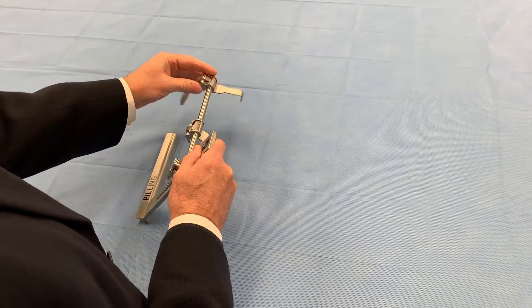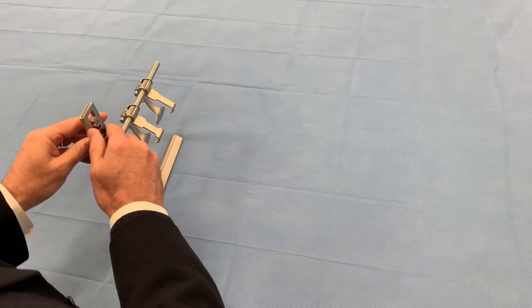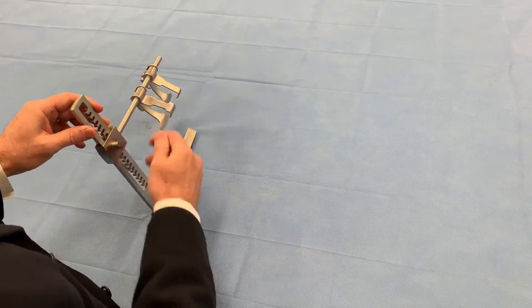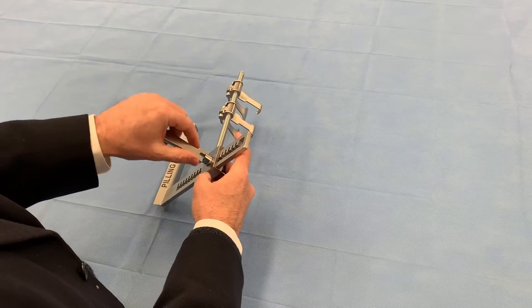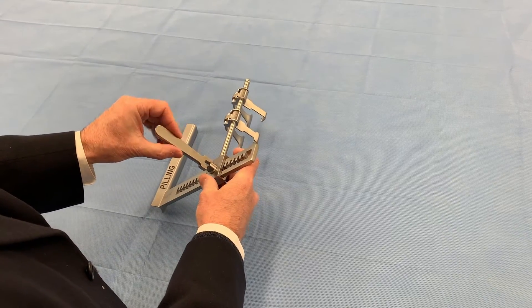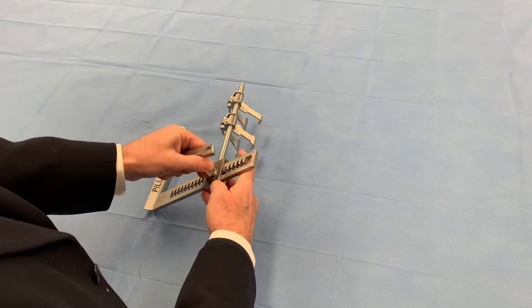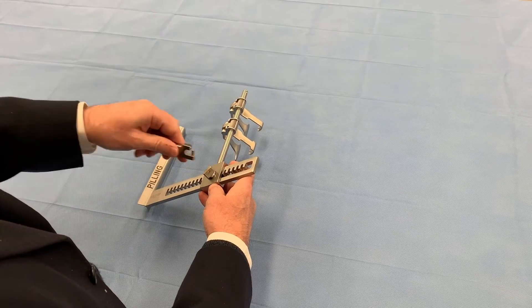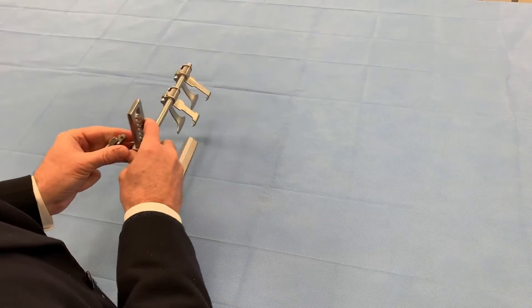The narrow blade goes over the stop. Now we're going to use it so it will go into the chest wall this way. To hang the crank on this side, we remove it — if you have the crank handle in line, it pops right out. If you try to remove it from the wide side it locks and won't come off, so you have to go straight in line on the skinny side and it pops right off.